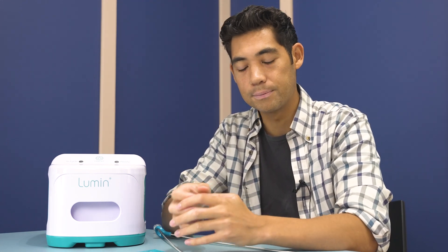However, you should not use baking soda to clean your CPAP tube, because it is a little bit abrasive and can scratch your tube. That scratched area is actually going to allow bacteria to hold on to the sides of your tube more easily and create even more effective biofilms.